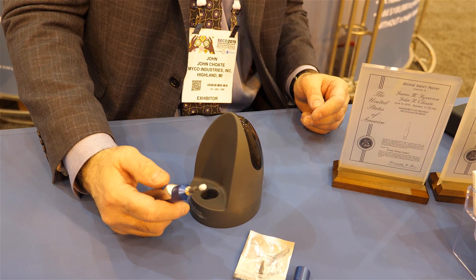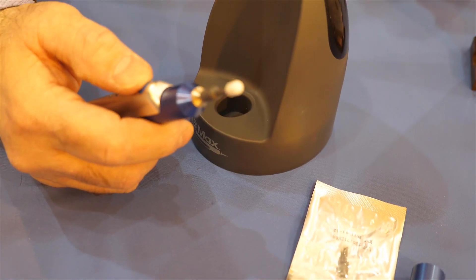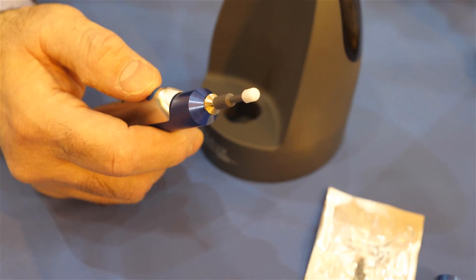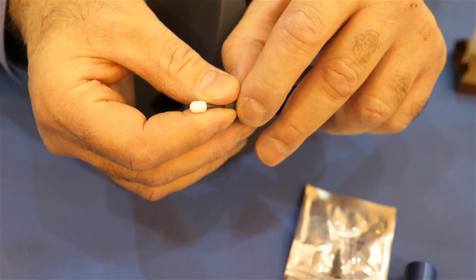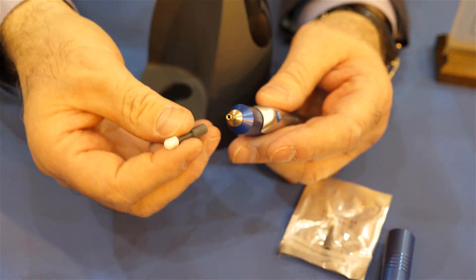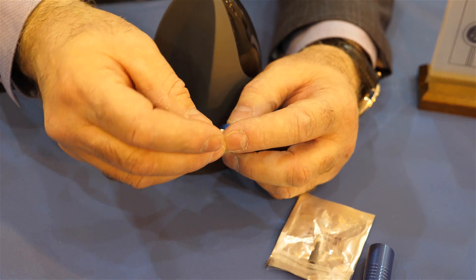Patients have told us it's a much more comfortable sensation and it does a better job of cleaning. Now let's talk about the tips. The tips are PVA — the same as competitor products. We're leveraging the Algerbrush chuck, and the tips are also patented. We've got six patents globally on the tips, with U.S. patents forthcoming.